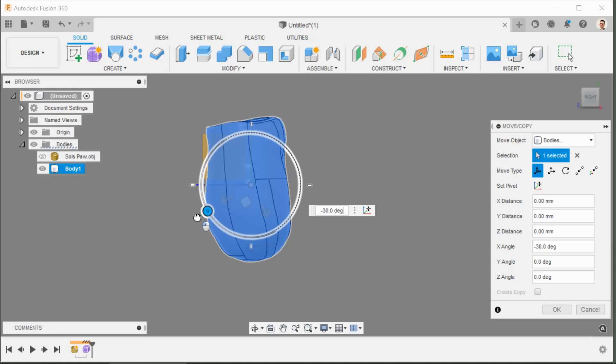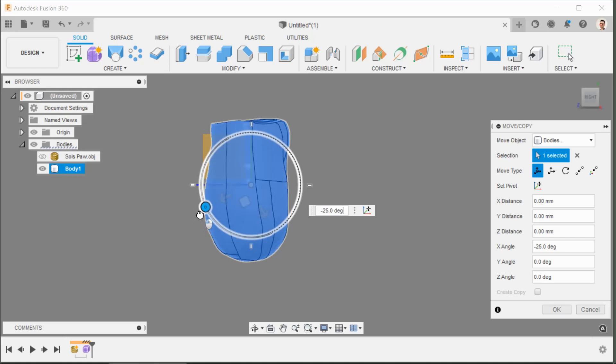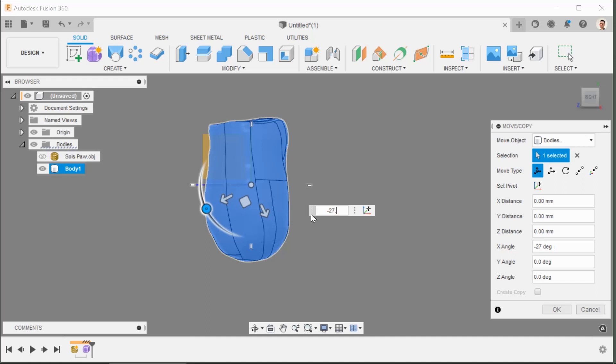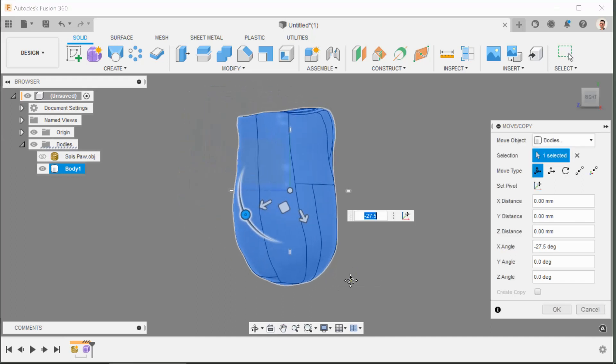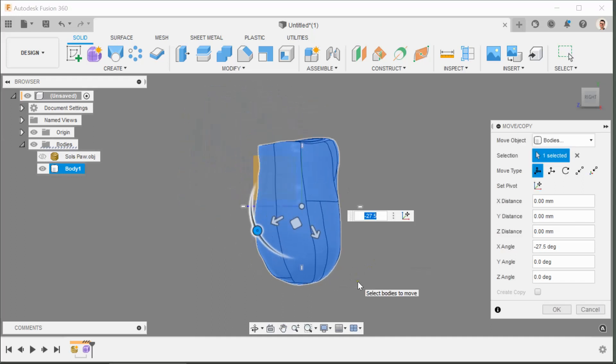And I can tell already because I know Sol's geometry like the back of my elbow, it won't snap to the right degree. So I probably need that to be minus 27 and a half because it looked like it's 27.5. That's a number that's halfway between the two options that we were snapping between. That looks good to me in terms of the vertical alignment.